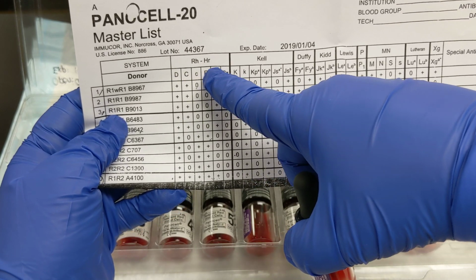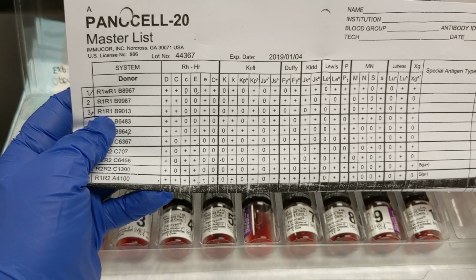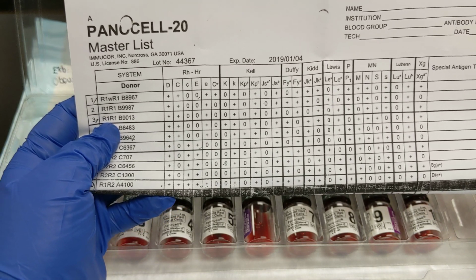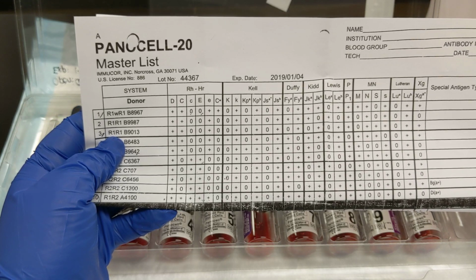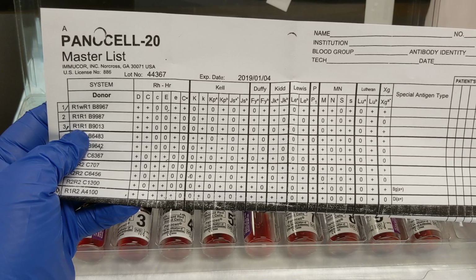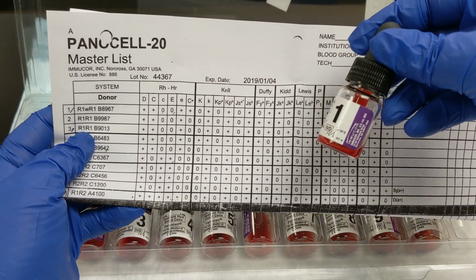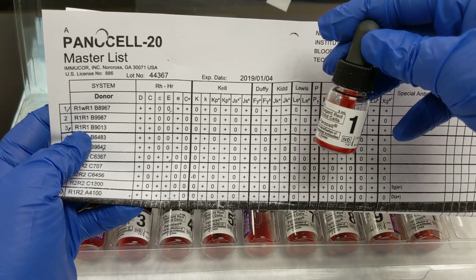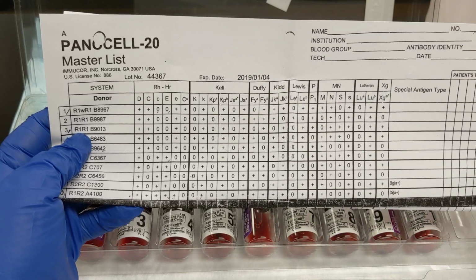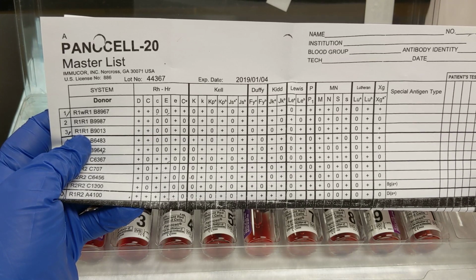And then each of these antigens across the top, so D, C, little c, big E, little e, CW, Kel, Cellano, KPA, JSA, all the way over to the XGA, the sex-linked. These red cells from this donor were tested against antisera for all these things so that they know what's positive and what's negative.